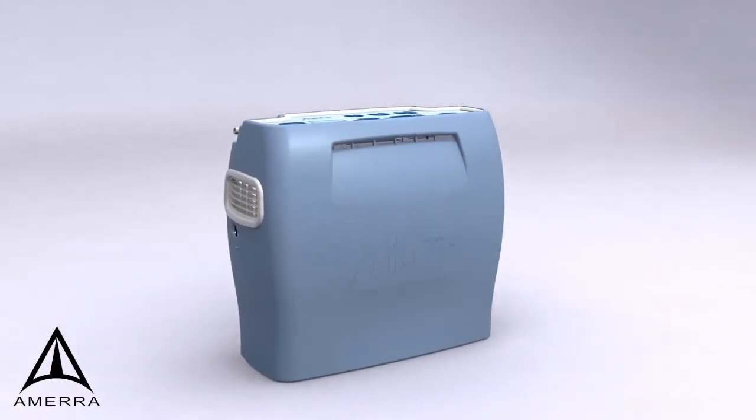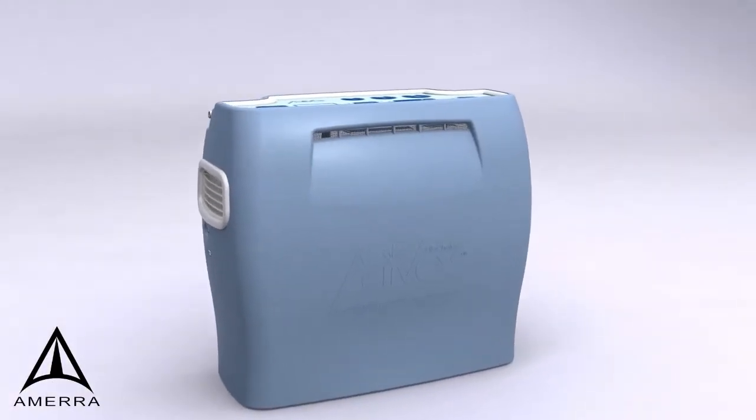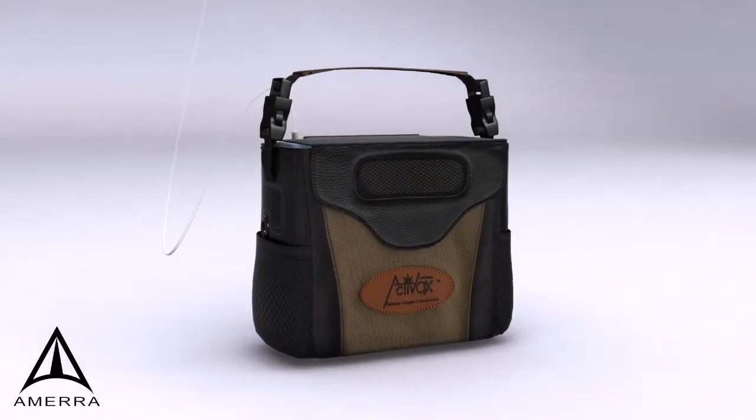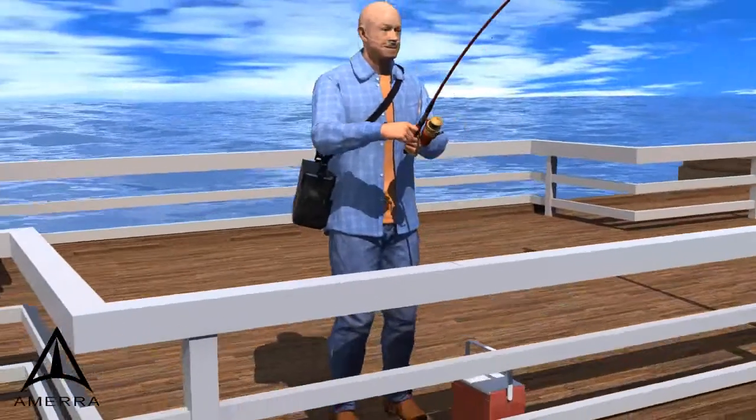The LifeChoice Activox POC does not require a cart. It's so lightweight that it can be carried as a briefcase, shoulder bag, or backpack for 24-7 use.